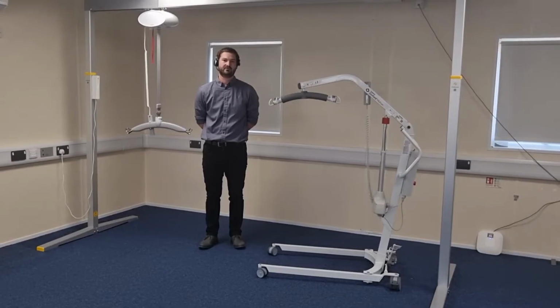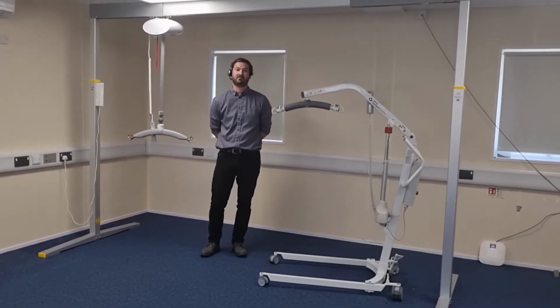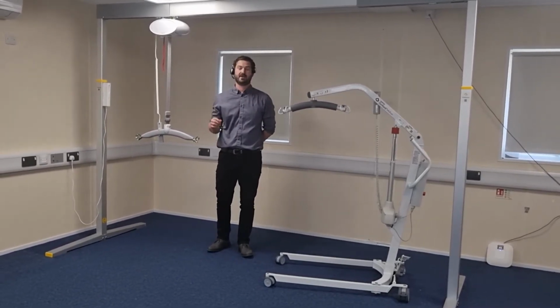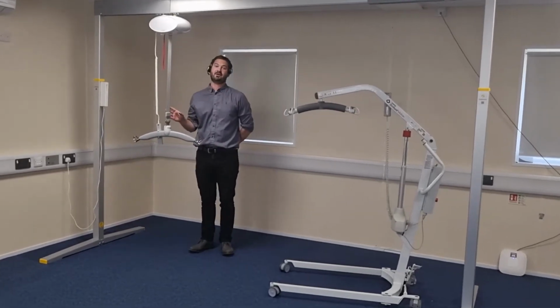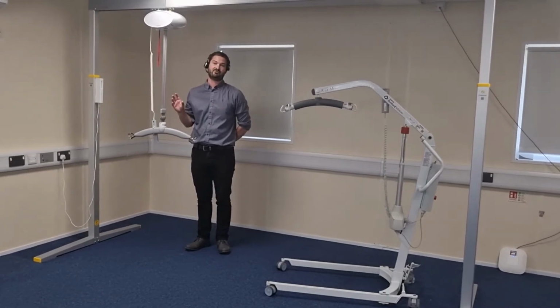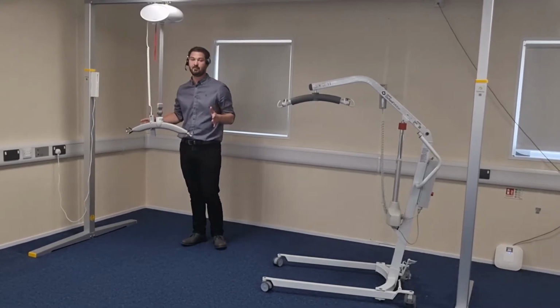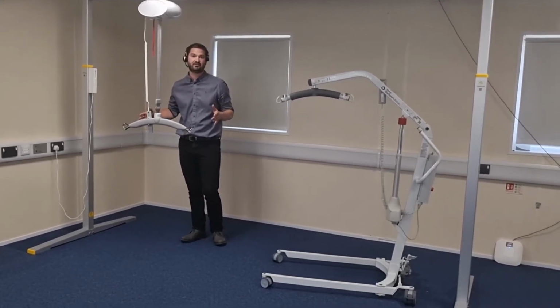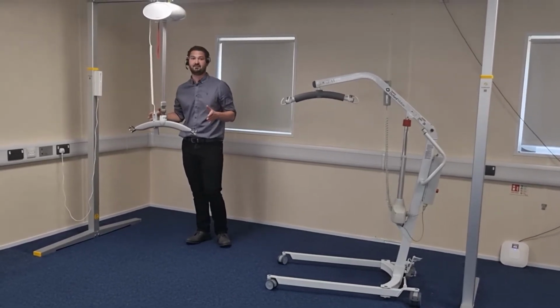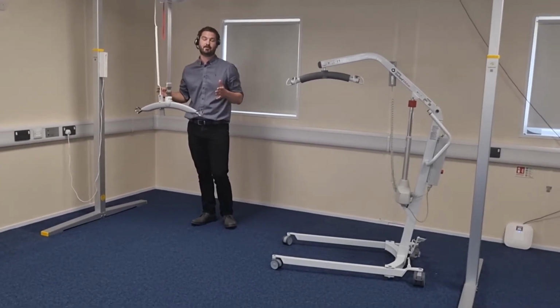So this is falls recovery from the floor using a passive hoist. There are two types of hoisting systems. There is a mobile hoist and an overhead hoist. With the overhead hoist, there is a lot less risk associated with transfers from the floor with this design of hoisting system. There's less framework to be negotiated or taken into account when looking at your risk assessment. So there's less chance of your person on the floor coming into contact with the hoist while being transferred up.